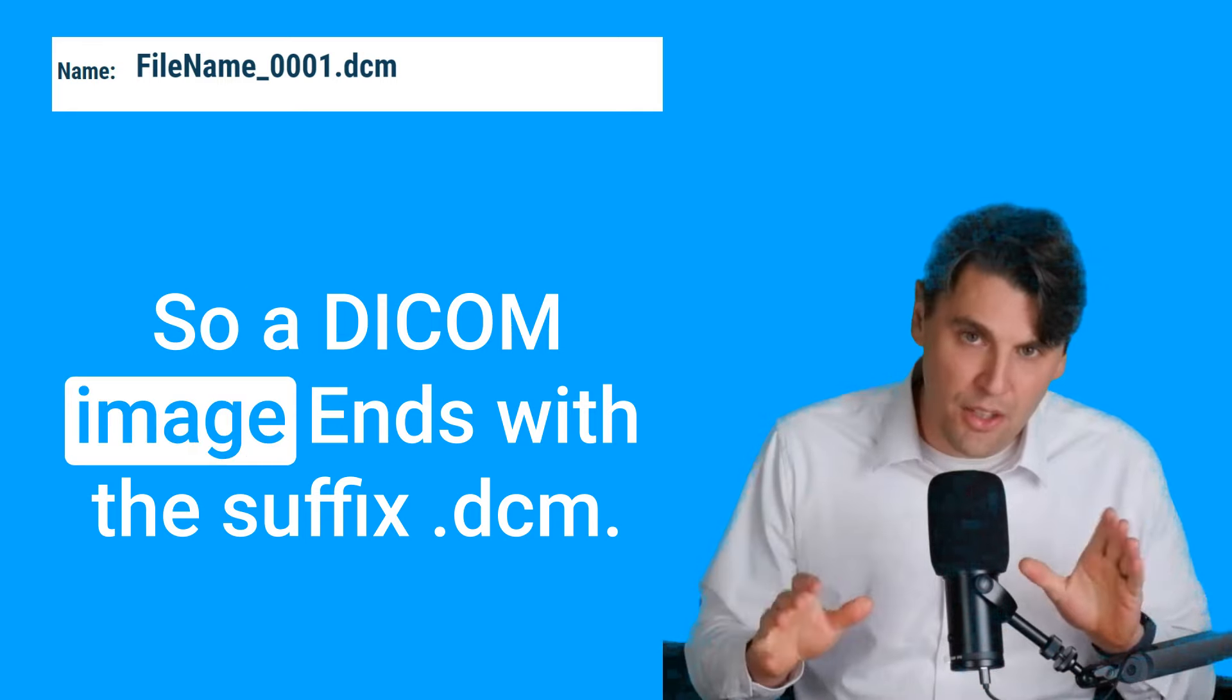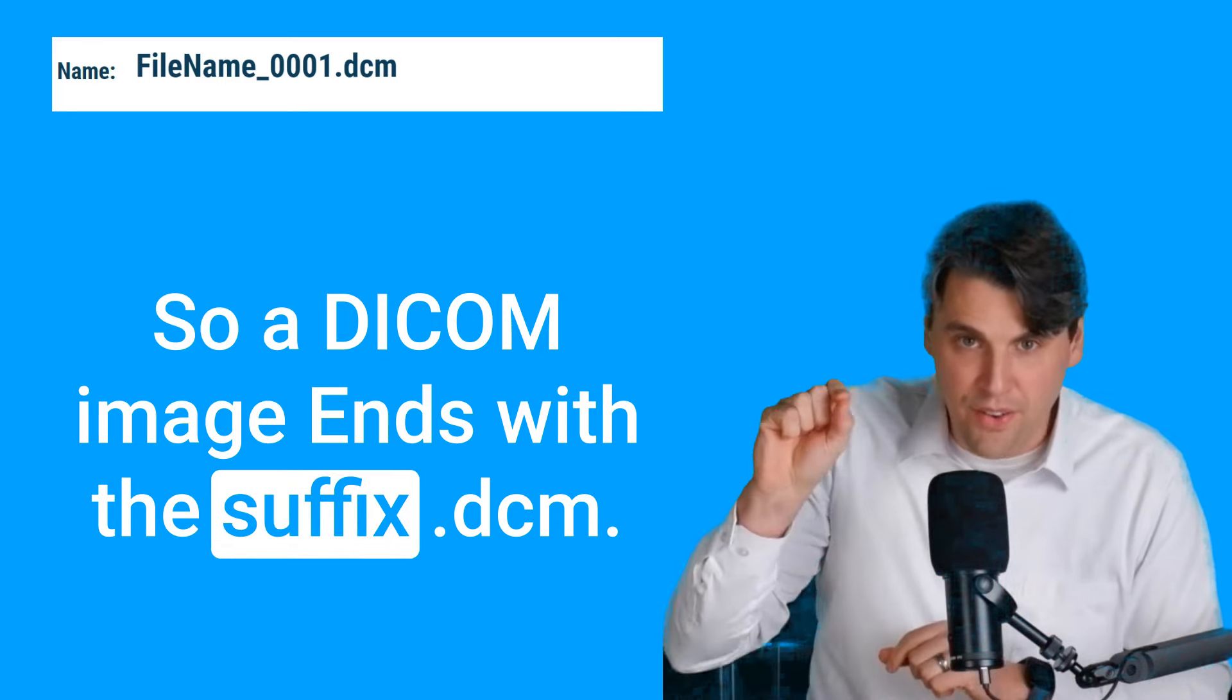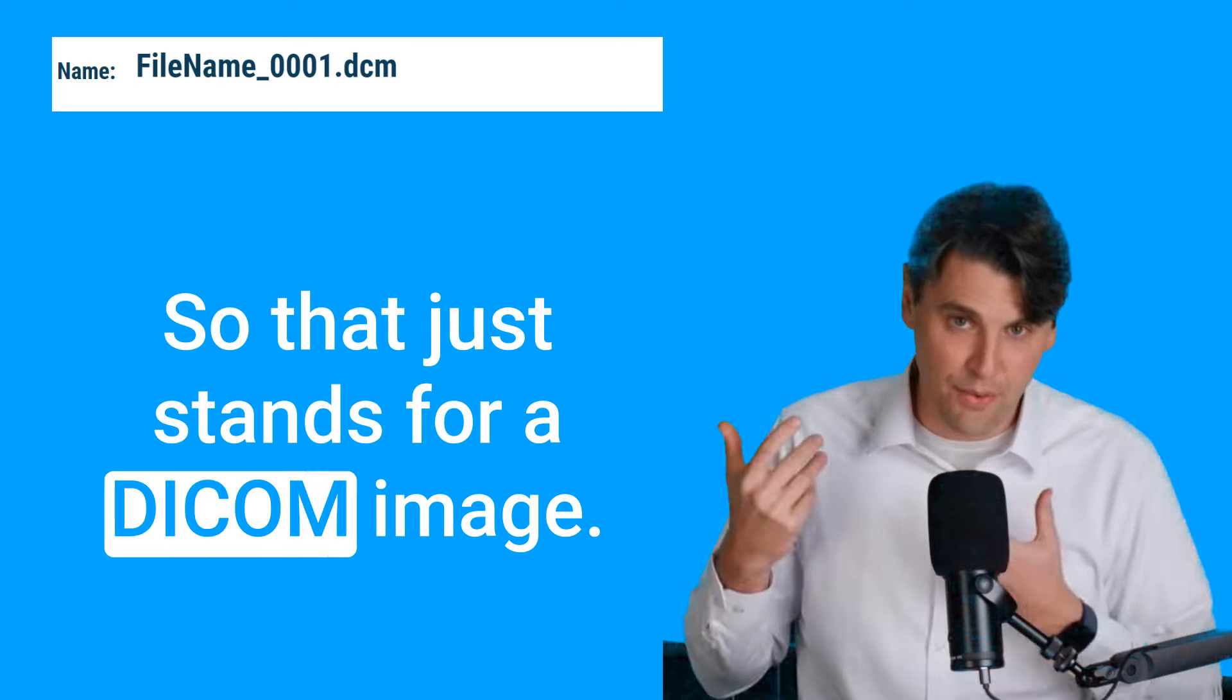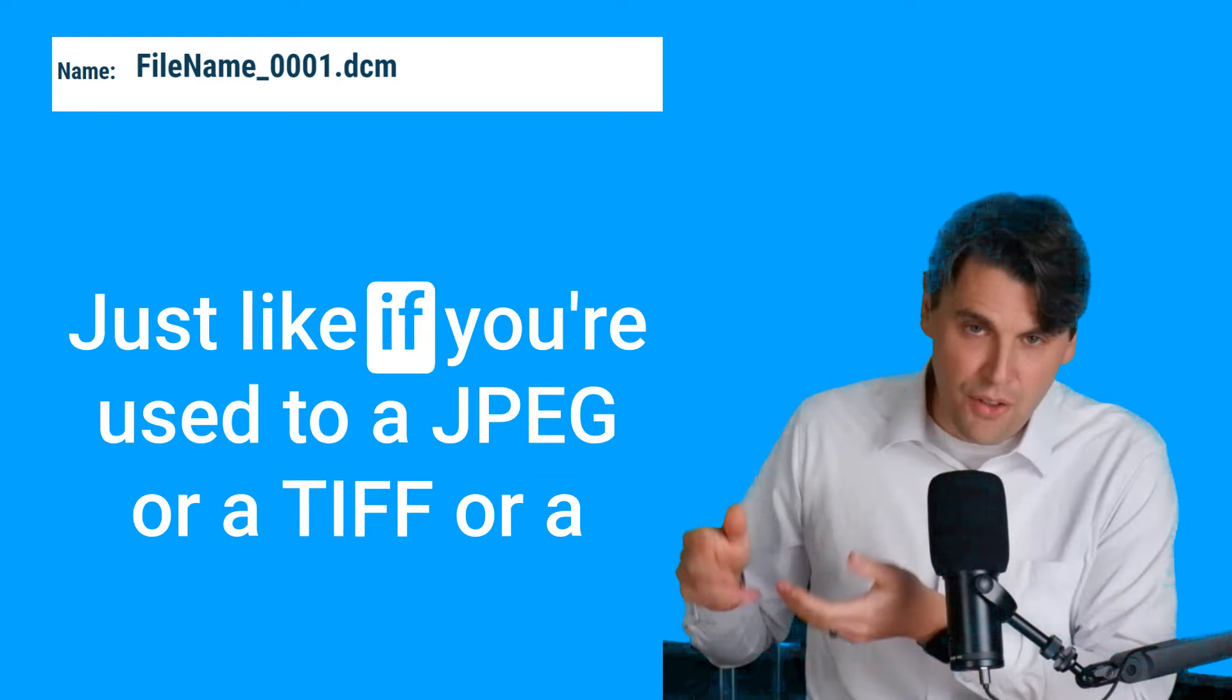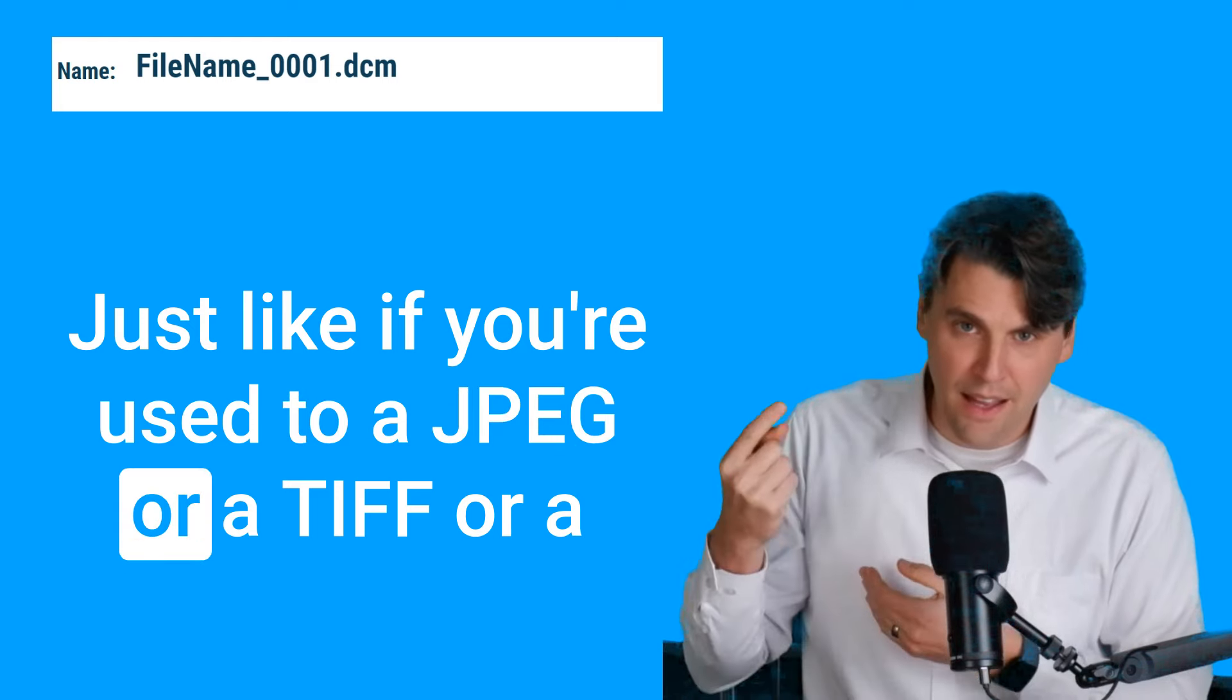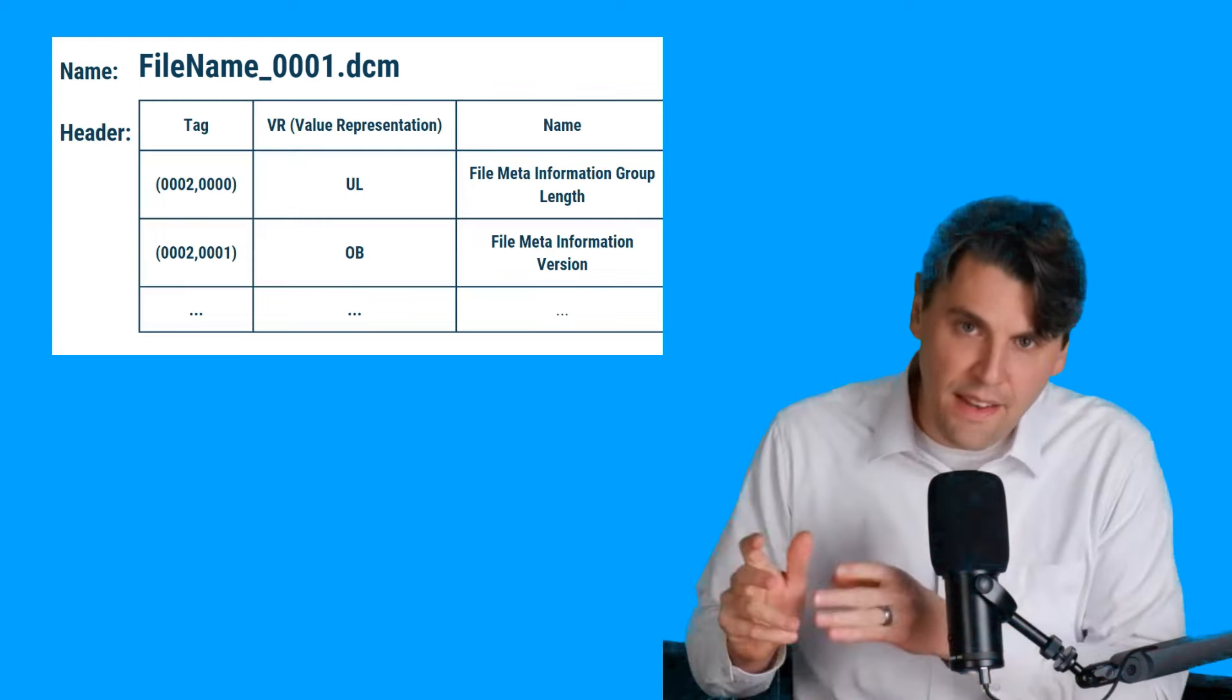So a DICOM image ends with the suffix .dcm. So that just stands for a DICOM image, just like if you're used to a JPEG, or a TIFF, or a GIF.